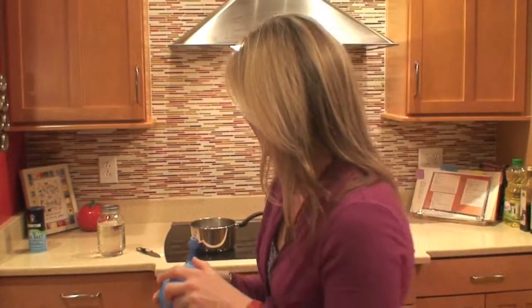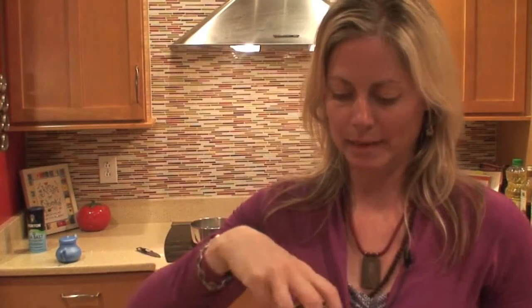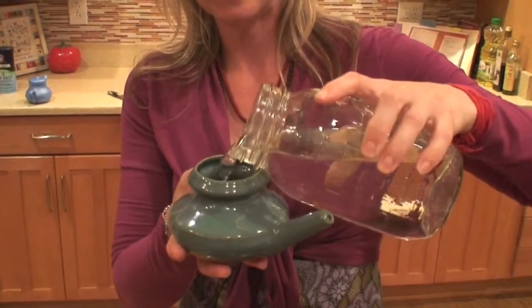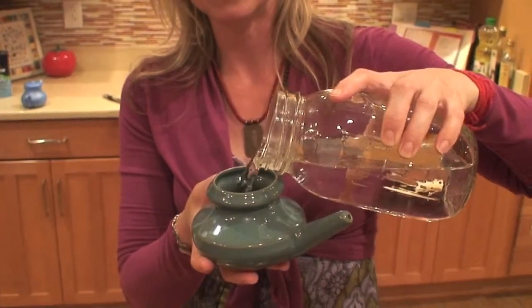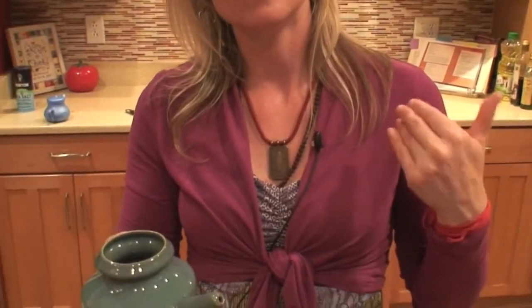So you just take your water that you've made previously, and fill your neti pot with about a cup of water. And that will be plenty to irrigate both sides of the sinuses. When we do the irrigation, first we turn the head all the way to one side, and then we're pouring that water into the upper nostril. But it's really important to have the face turned downward so that the maxillary sinus is tipped downward. That way we can actually get the water into the sinus cavity.